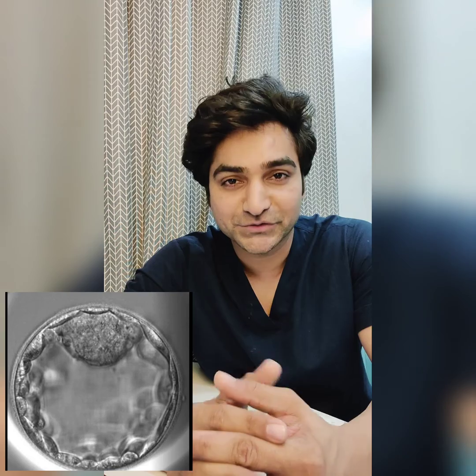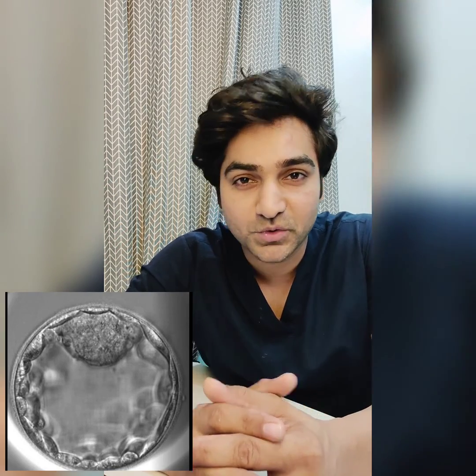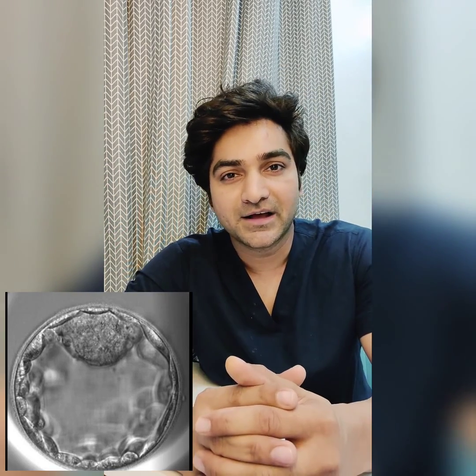So why am I doing this? The reason is that blastocysts which are developed from good quality oocytes give better results. This strategy has actually helped me in improving outcomes and achieving pregnancy for patients as fast as possible.